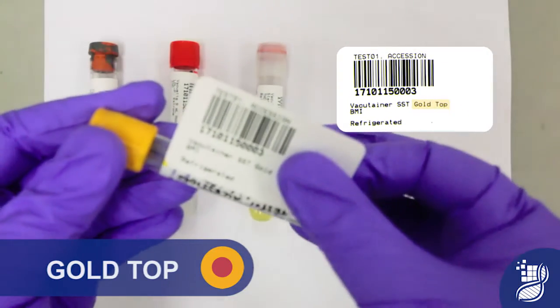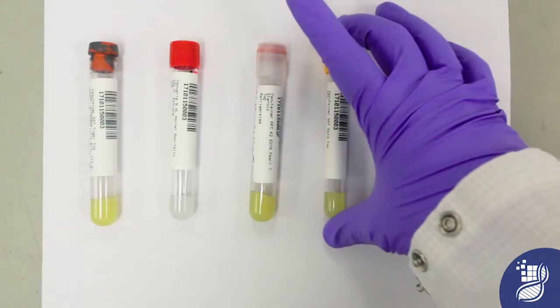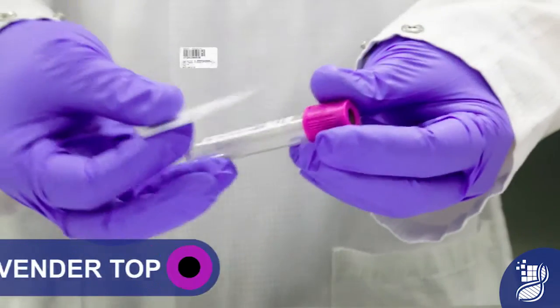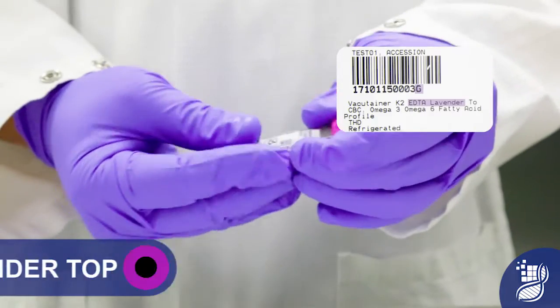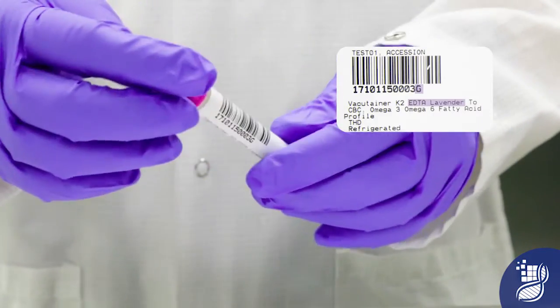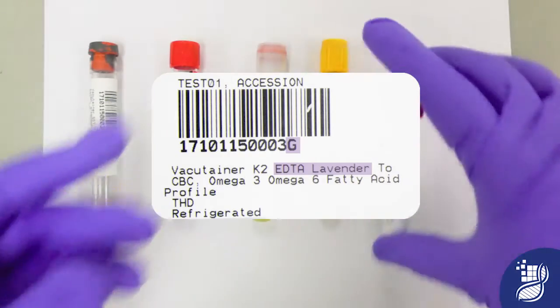Gold Top label will be applied to the serum Gold Top tube. EDTA Lavender Top label will be applied to the Lavender Top tube. Notice this label also has a bump, a G at the end of the SID, specific to this tube type.